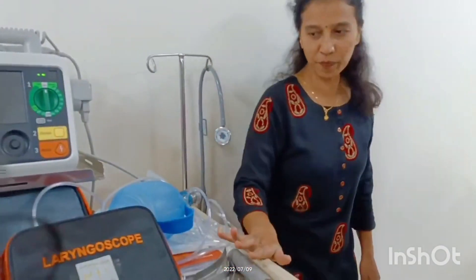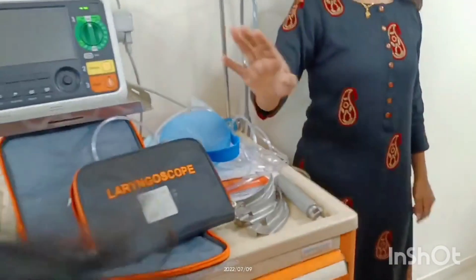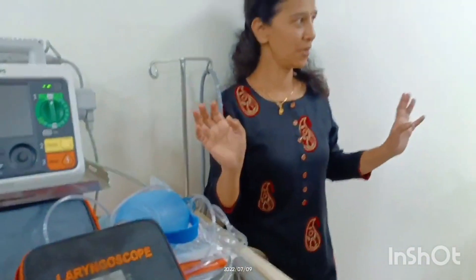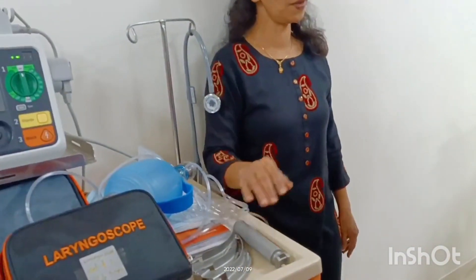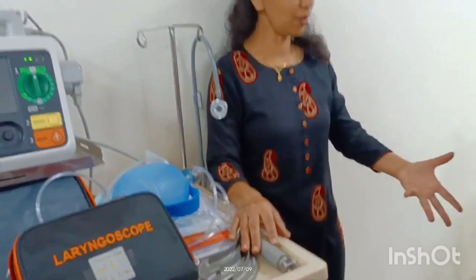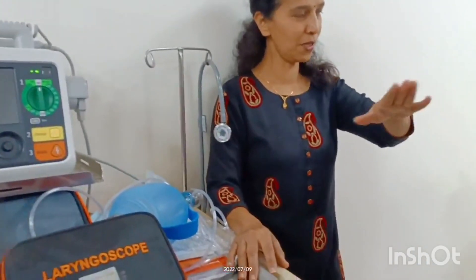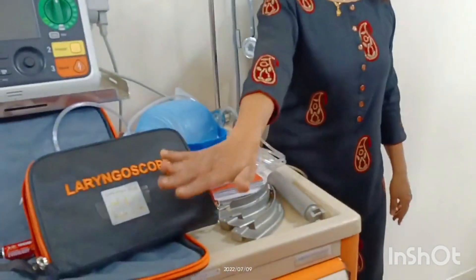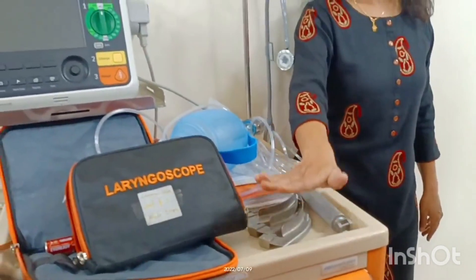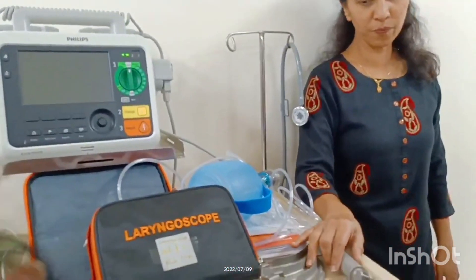Once you have done all the BLS steps and the patient is still not awake, there is no pulse, you do CPR — that is the BLS part. Then you go for the next step, ACLS. That is when the laryngoscope and all the intubation equipment come into use.